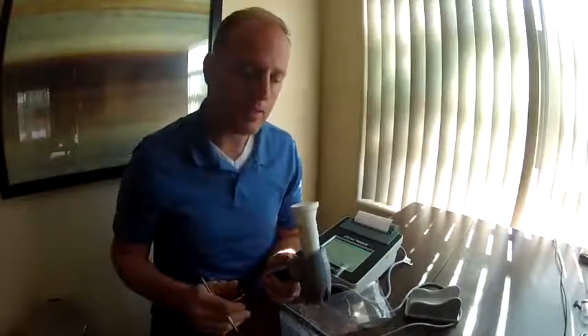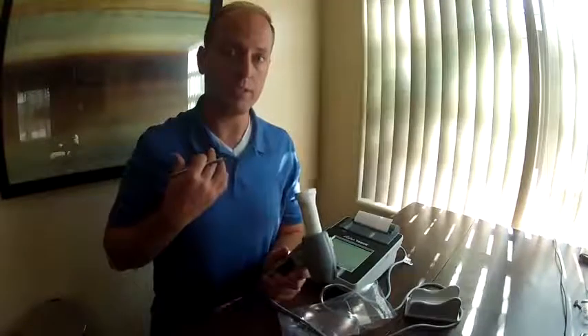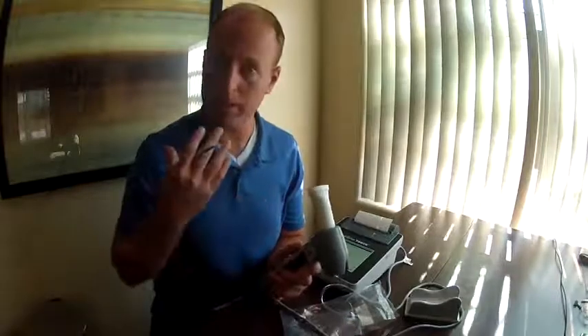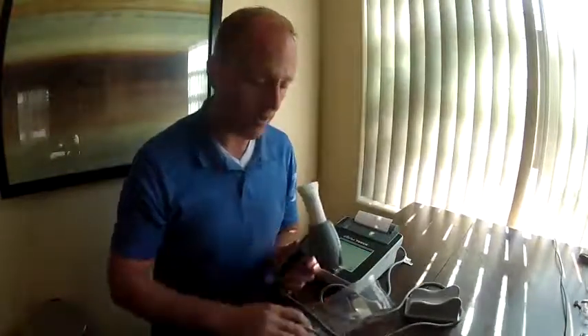This machine allows you to do tidal breathing. A patient can put their mouth onto the mouthpiece, relax, breathe the rest of the air out of their lungs, then sharply inhale to fill their lungs, and then exhale all the way out until empty. At the 6-second mark it will finish. It triggers itself when you sharply increase your breath, so patients don't have the anxiety of preparing and placing the mouth on the device beforehand. It's very easy for the patient. So it's still waiting for me — here I go.